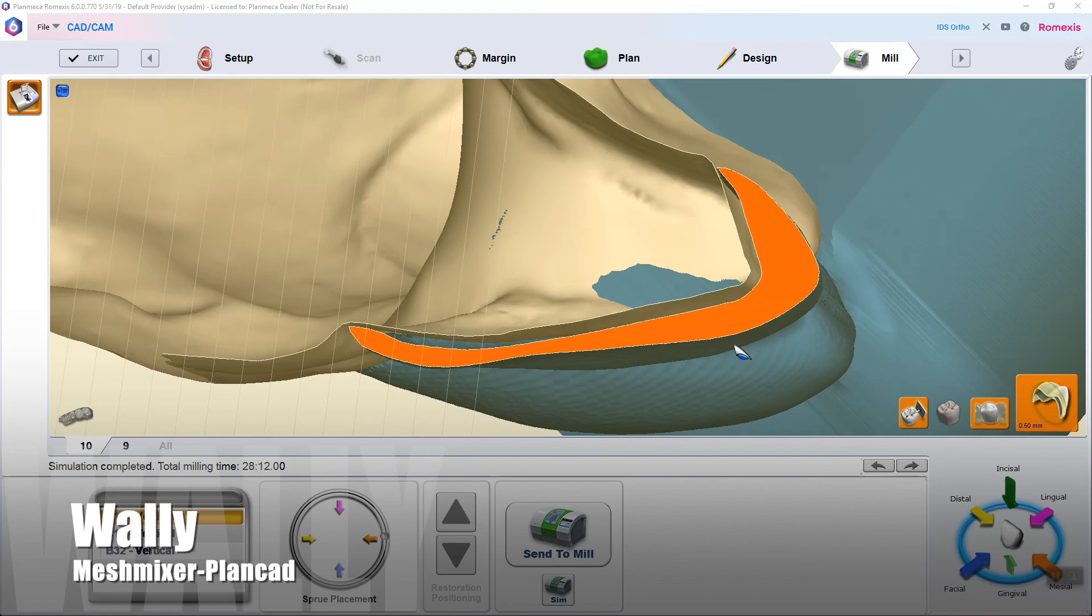Now, one thing that you'll notice, if you could see through that tooth, you see that mesial interproximal there? That's blue. That's probably going to be a little bit of a binding spot we know to grind away ahead of time. So anyway, I thought it would be a cool case to show you guys. Just kind of a workflow. Super easy. If you can't do this in Mesh Mixer, there's a couple other brilliant people that have done better videos than myself that you should look up. Just search on YouTube how to extract teeth on Mesh Mixer. I also have a few on there as well. So anyway, I hope this helps. It also helps to understand why it's so important to have an open system where you can import and export things in and out of. It's kind of the perfect way to do things.